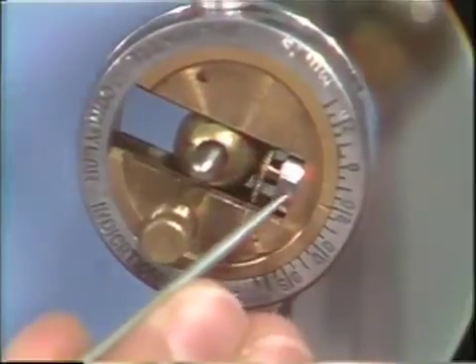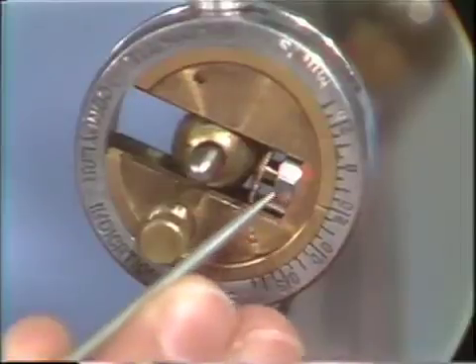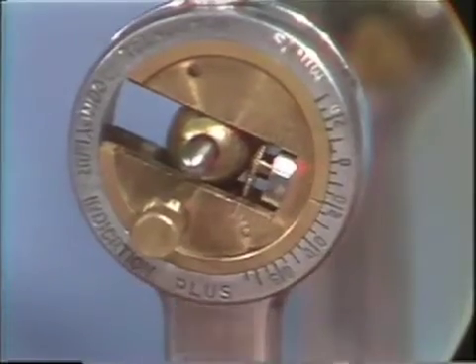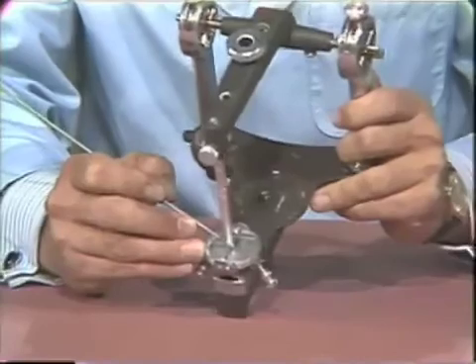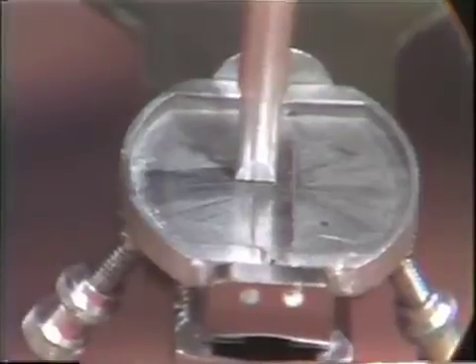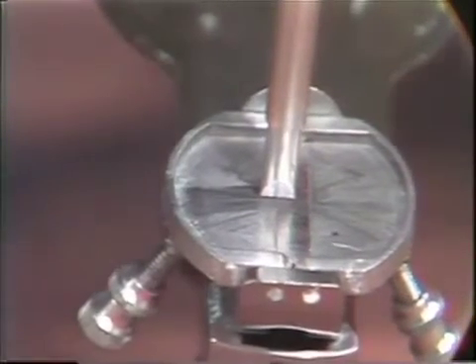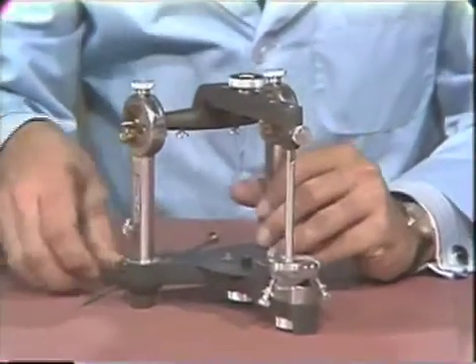It is possible for the cylindrical spacer to be missing in some cases, in which the thumb screw would then have to be adjusted backward to the zero position. In the situation simulated here, the thumb screw should be adjusted to the forward position. Looking at the incisal table, we can see that the incisal pin is deflected to the side at which the condylar ball is most posterior — in this case, deflected to the right because the right condylar ball is simulating the protrusive relationship.